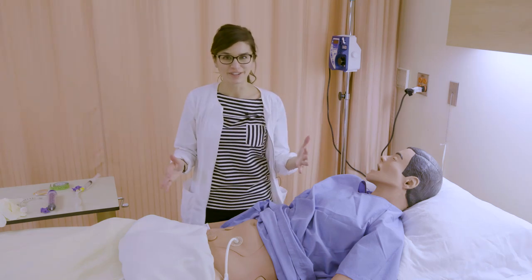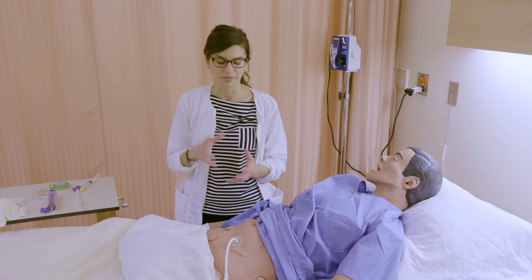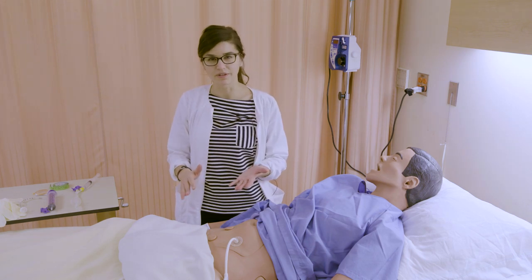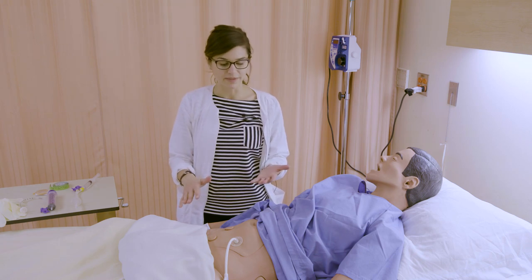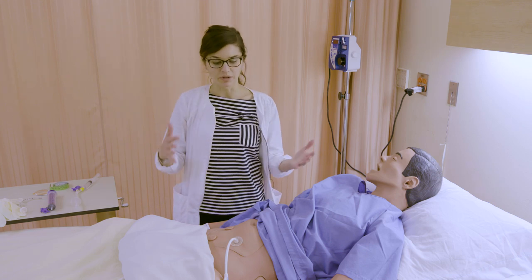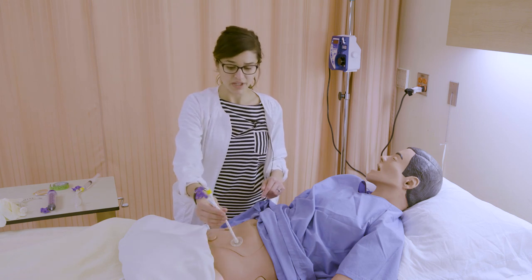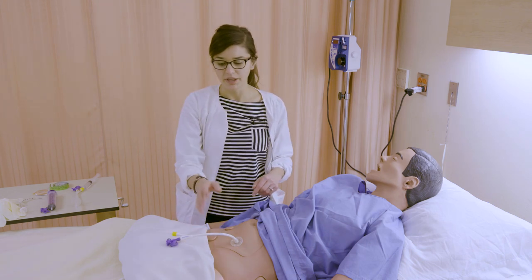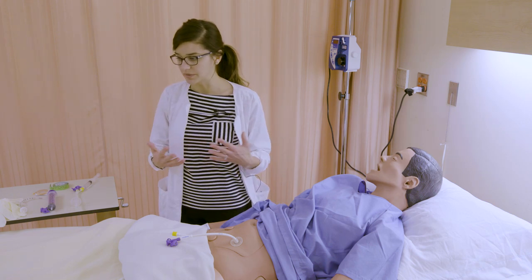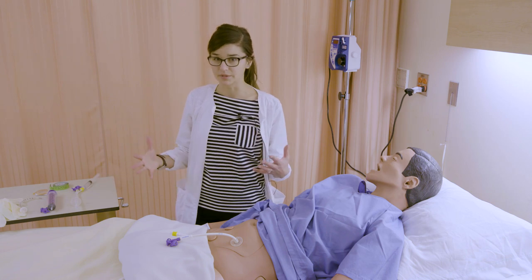We're going to talk about enteral feeding tubes, the most common types you'll see, the different names for them, and the mechanisms of how they work. An enteral feeding tube refers to any feeding tube that's providing nutrition throughout the GI tract. The person isn't swallowing; we're putting it in either through a nasogastric tube, a G-tube, or gastrostomy tube, surgically placed or placed through endoscopy in the stomach. We'll talk about some of the different types of gastrostomy or duodenostomy tubes today.